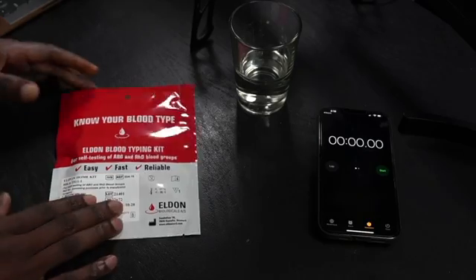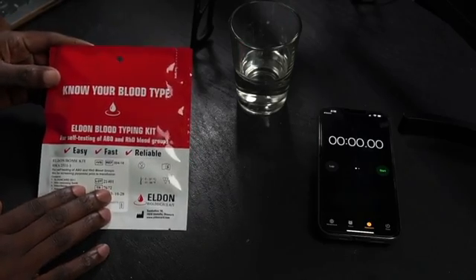If you want to test your blood to know what blood type you are, fortunately there's an easy, simple, and affordable way to do this at home using the Eldon Blood Typing Kit. My name is Lesley Samuel, and in this video I'm gonna show you how to determine your blood type at home. So let's do it.